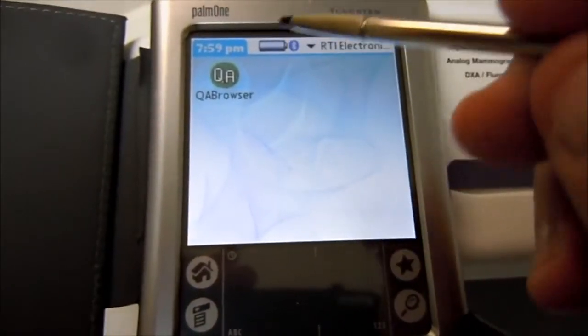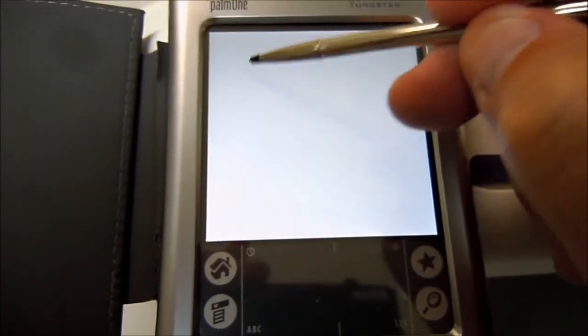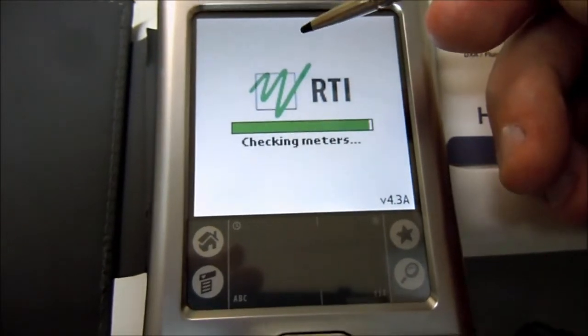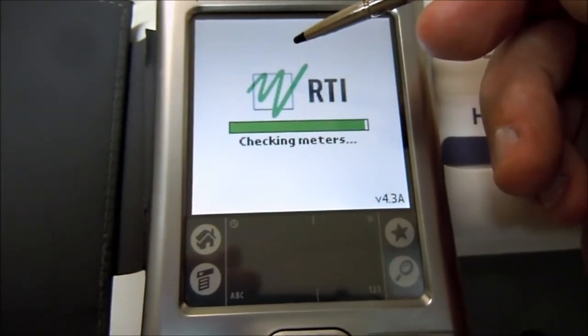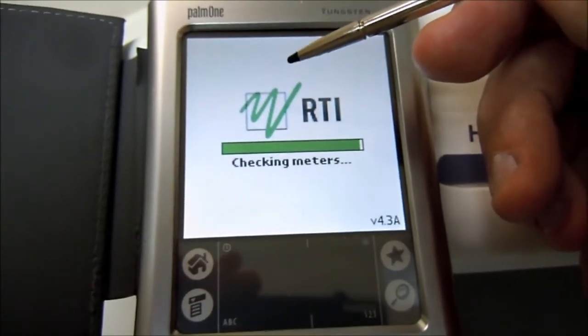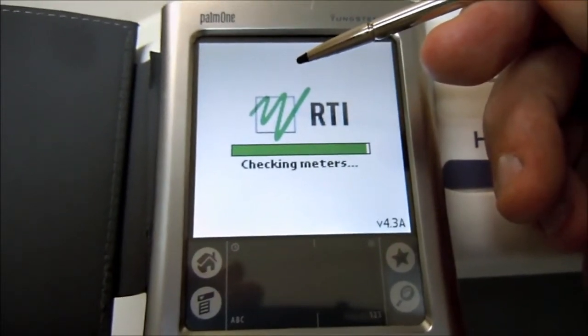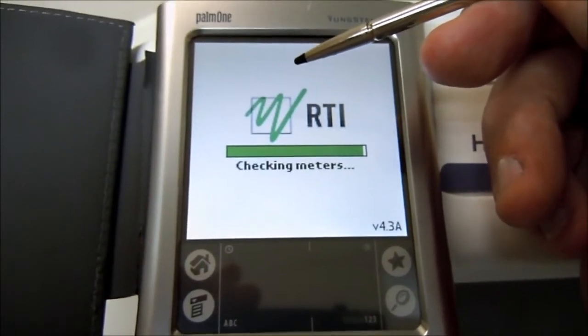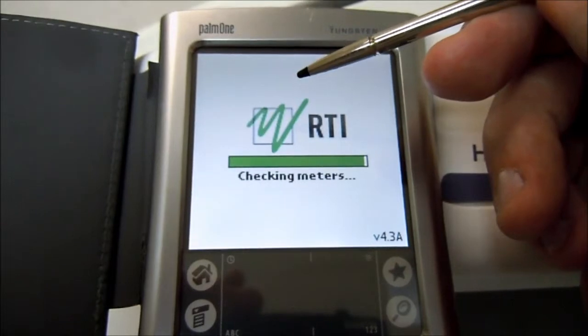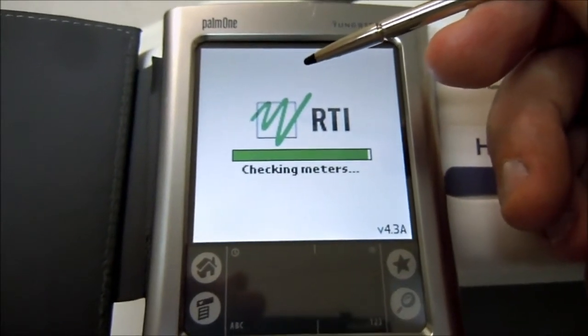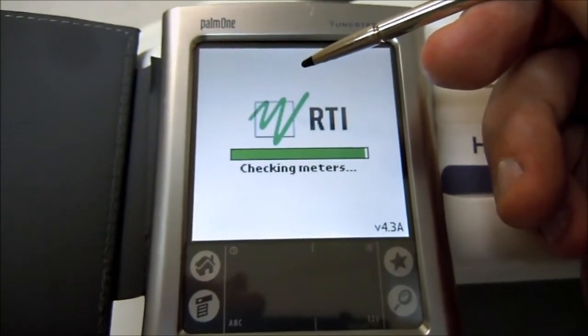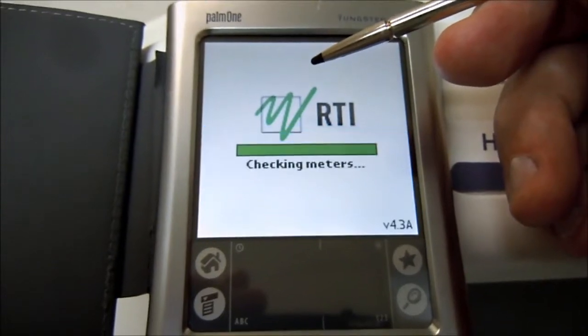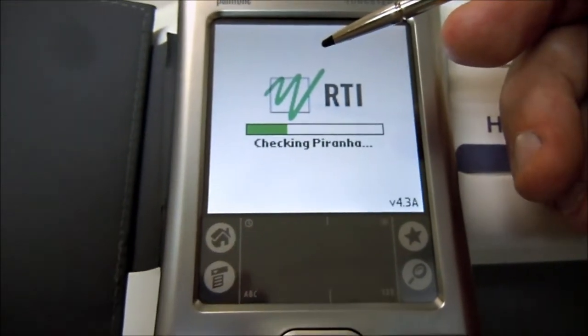Here on my QA test device, I'll click Browser. It's connecting via Bluetooth, which is over there already on the bucky or the grid.